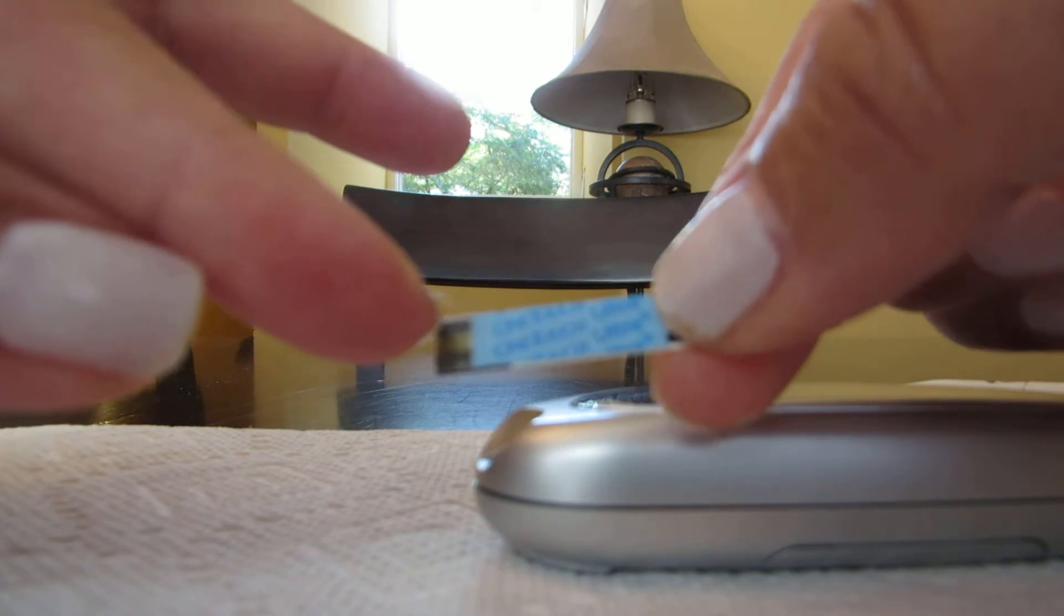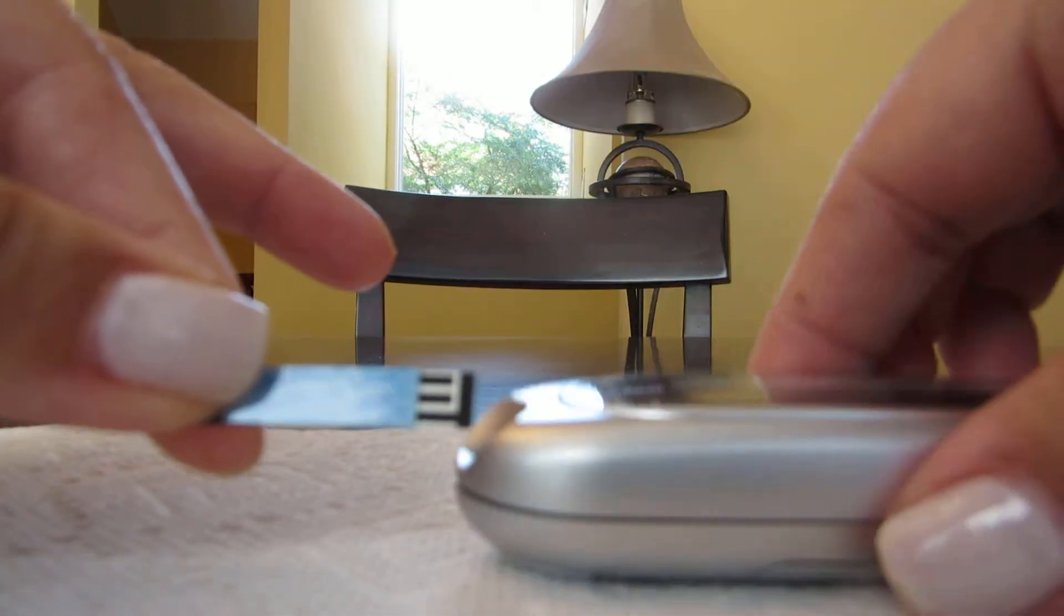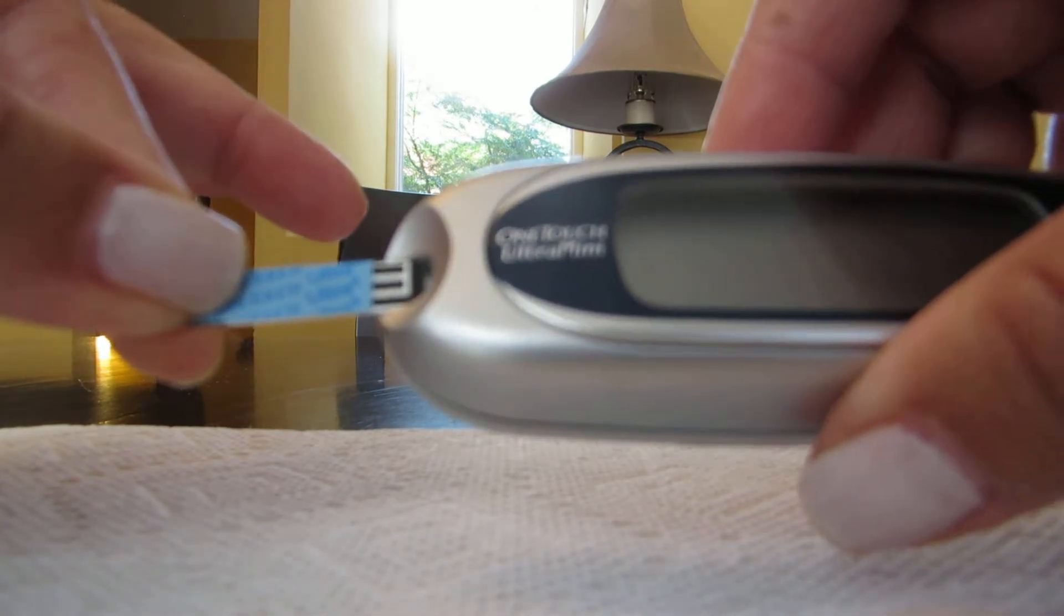The one slot for the blood has to stick outwards, the zebra parts, and this one will go into the monitor. Press firmly, don't jam, and then wait for all the settings to clear.